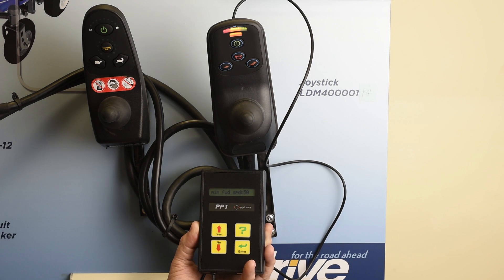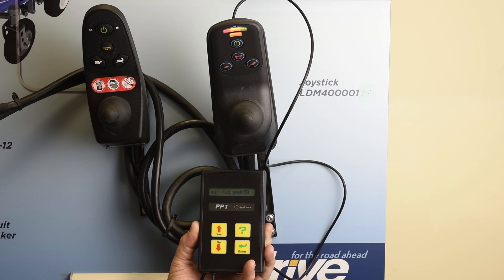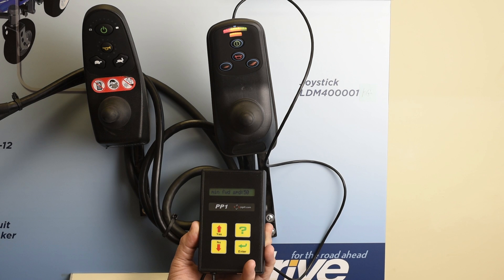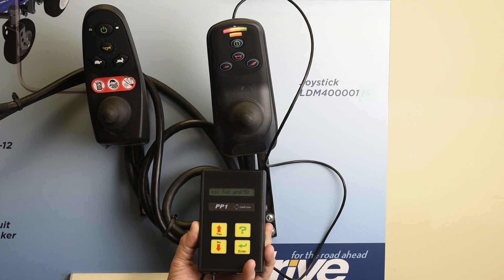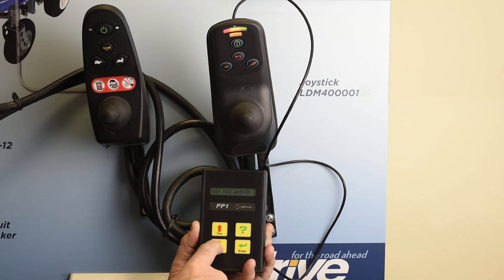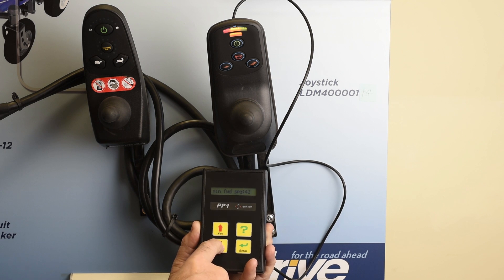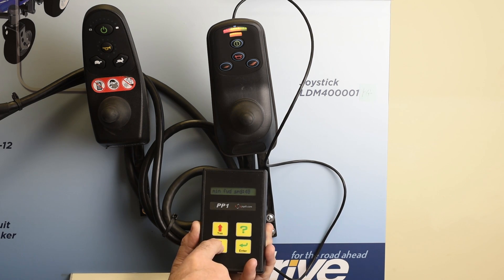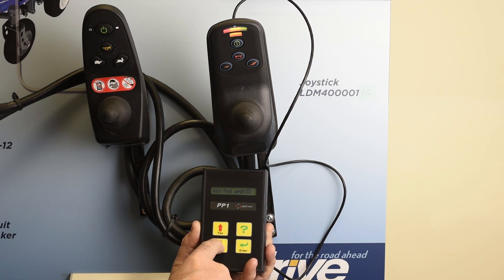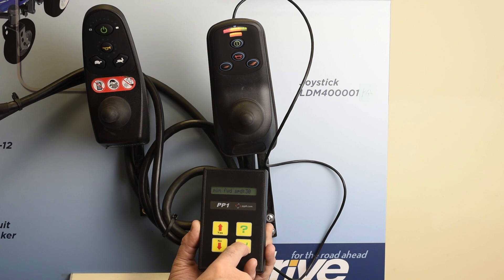We also want to close down the minimum forward speed because when you hit the slow button, it would still be a bit fast. So we want to lower that — we'll go to 30. And we hit enter.